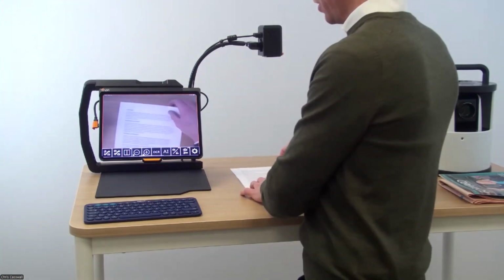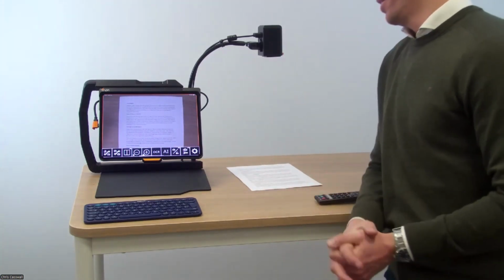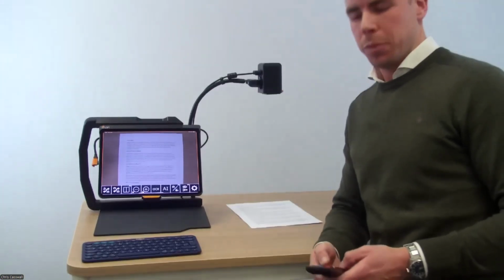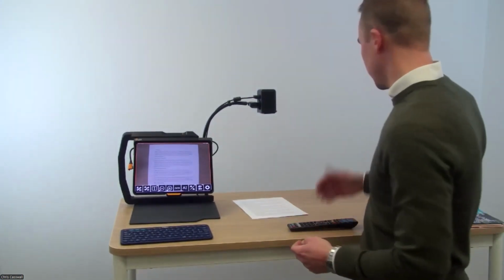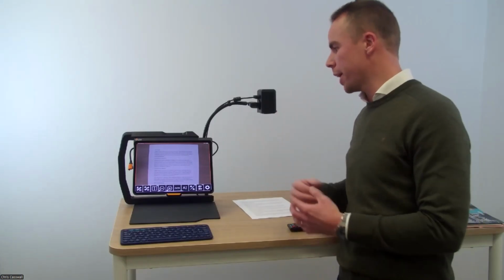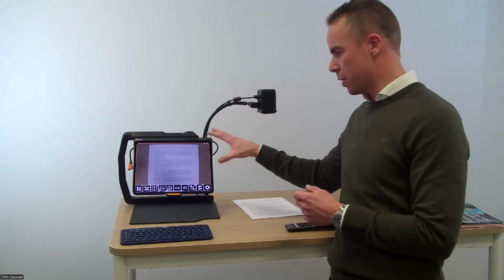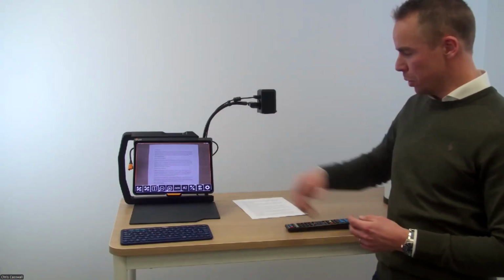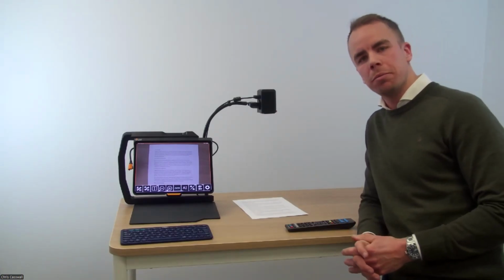Kimberly mentioned during her presentation earlier that these are all using the same software. Since we are still on the iPad for the MagniLink Air Go behind me, the MagniLink S, the MLS, and now the iTab, they are all connected to an iPad. In this case, I have a 13-inch iPad Pro that I have put here in the stand, and they are all using the same software.